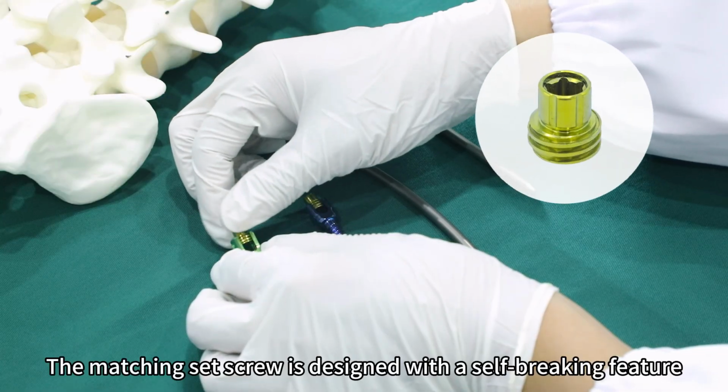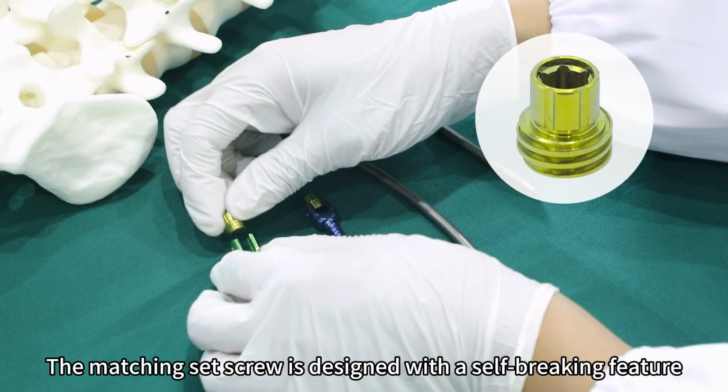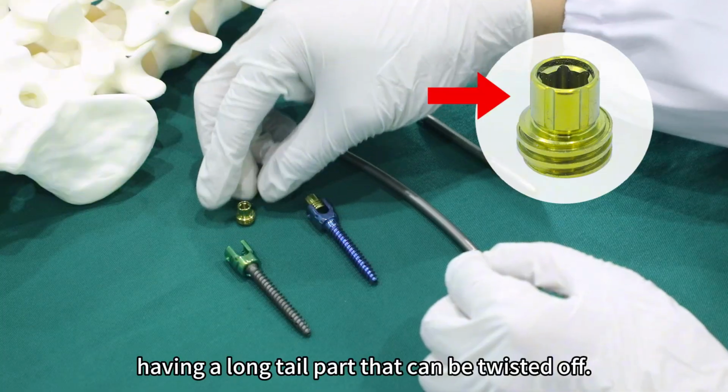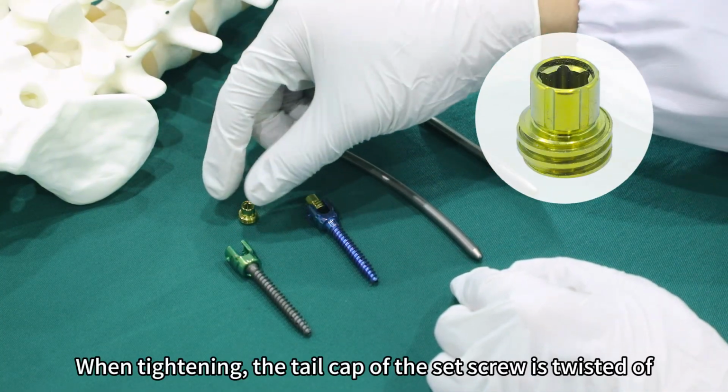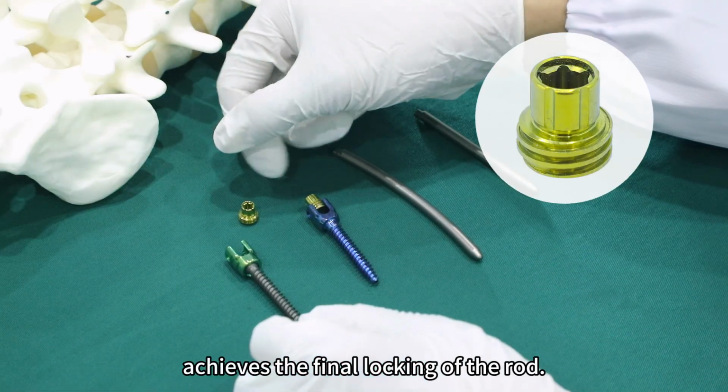The matching set screw is designed with a self-breaking feature, having a long tail part that can be twisted off. When tightening, the tail cap of the set screw is twisted off, which achieves the final locking of the rod.